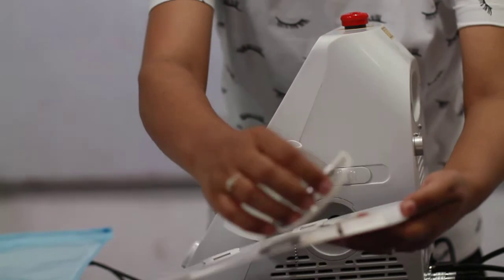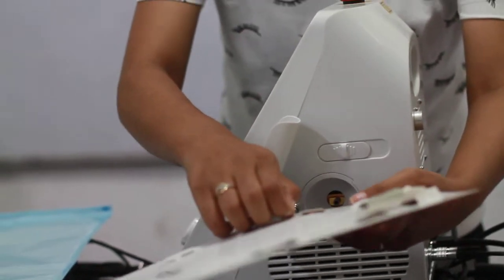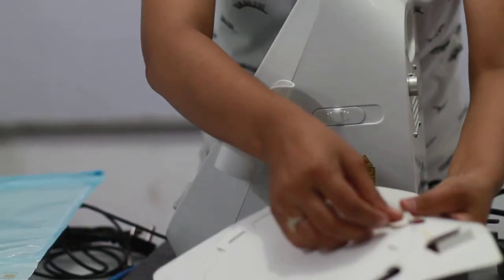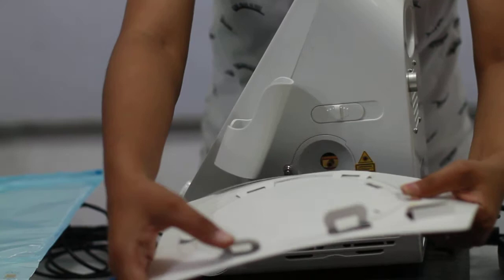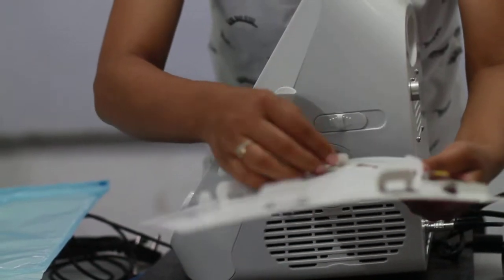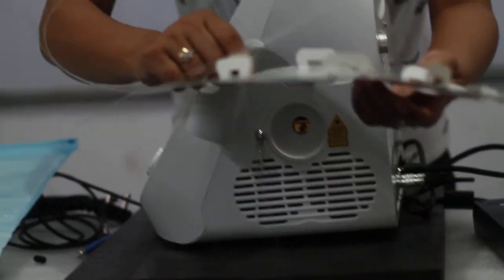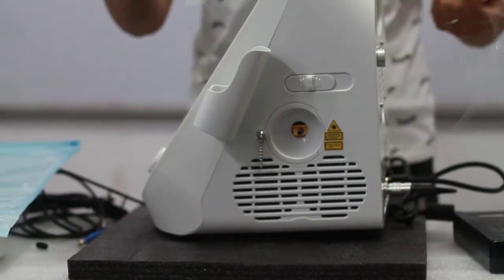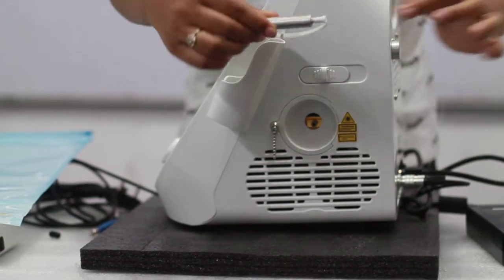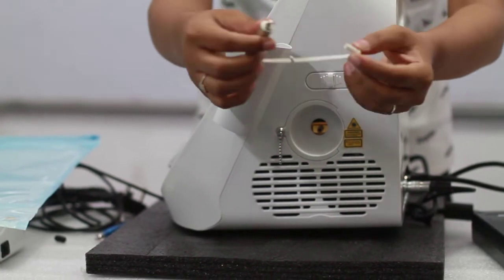You have to slowly remove your fiber from the covering. You can take all these attachments which are given and slowly take it off. This is from where you will connect your fiber to the unit. Remove this rubber covering.